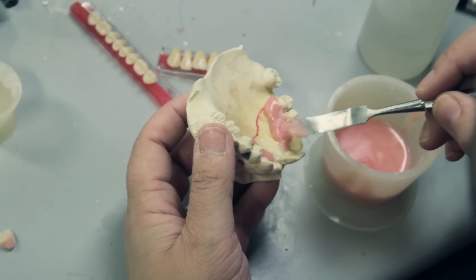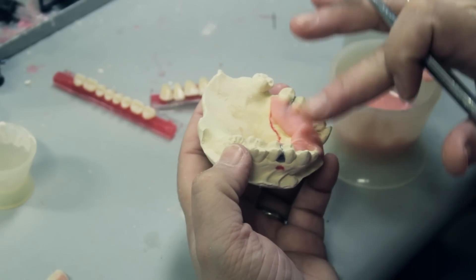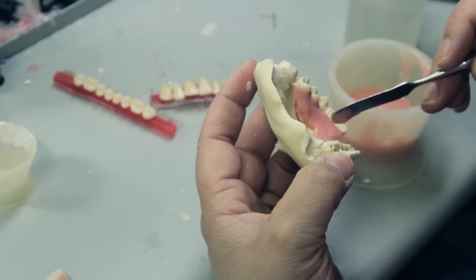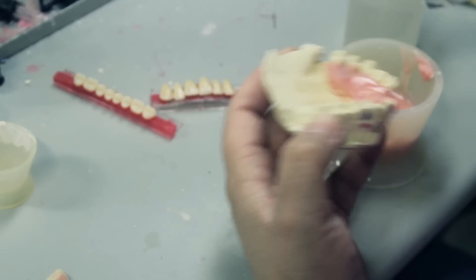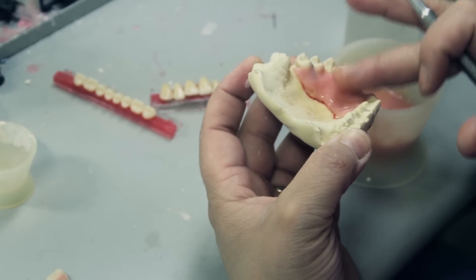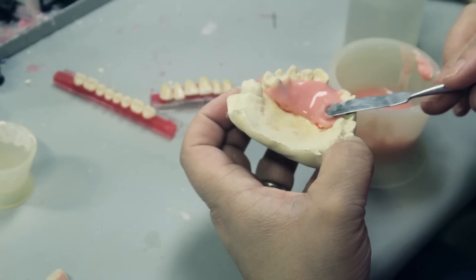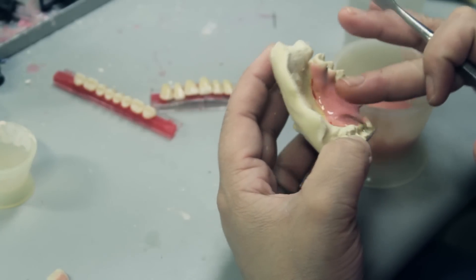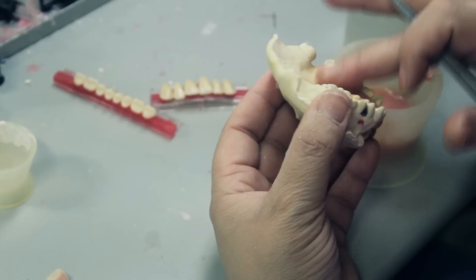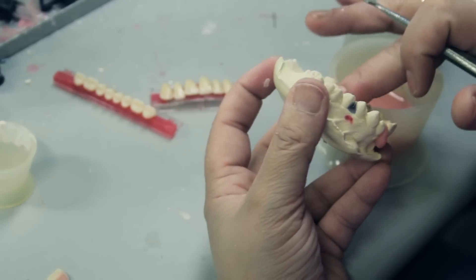I continue to apply acrylic until it has become workable. I address any bubbles from the underside of where the acrylic and the model meet. I repeat this process and continue to smooth until the material has almost completely cured in my hands. As you can see, the acrylic is getting thicker. This will help with the thickness of the appliance. I can move the acrylic around to where I need it to be, ensuring that the clasps are completely covered and the palette is covered, especially up to my red finishing line.